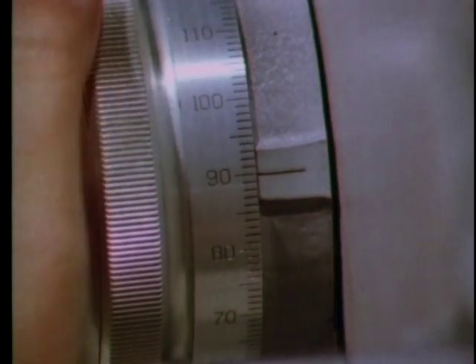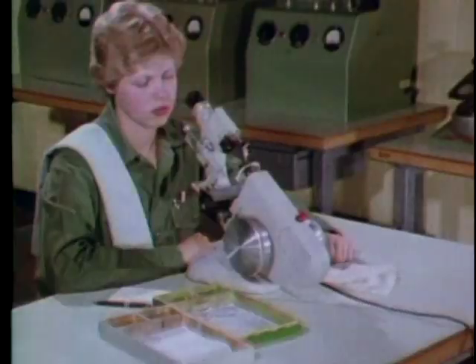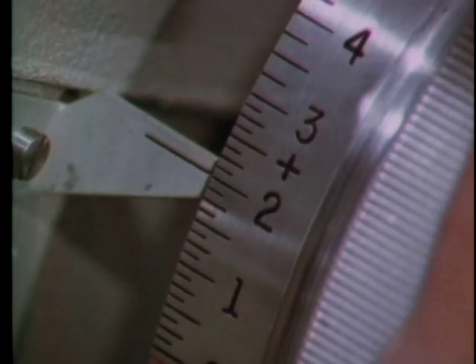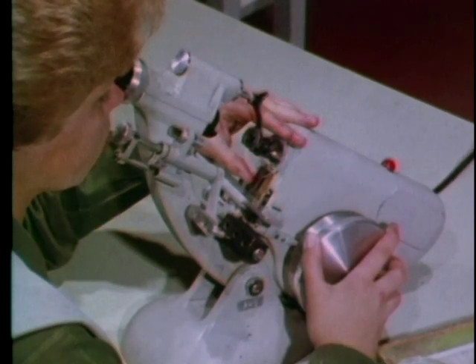Note the reading, then refocus the power wheel as necessary. Next, center the lens by hand until the target lines cross in the center.